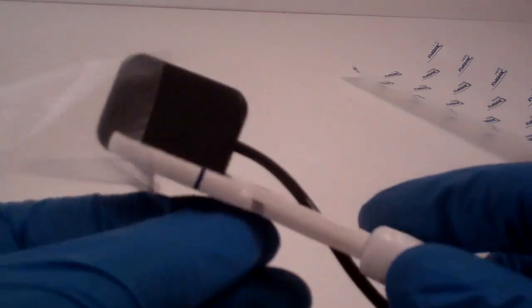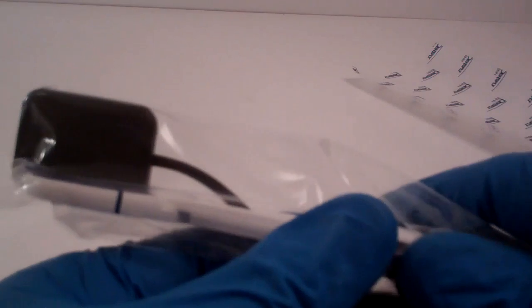Sometimes the sensor covers can be a little slippery. So for this particular type of holder, eliminating having that cover in between the sensor and the grips will give you some additional stability.